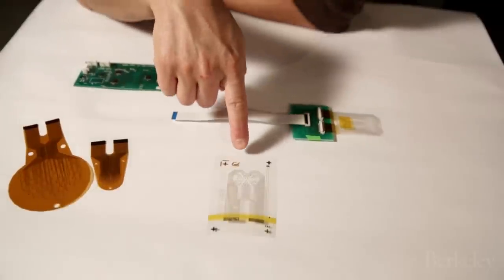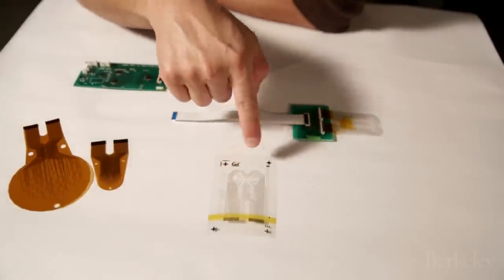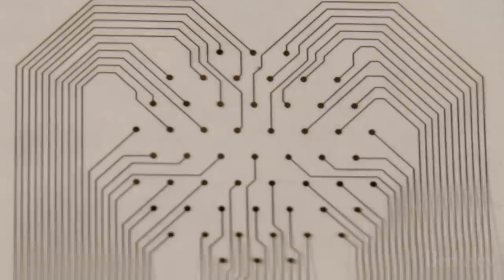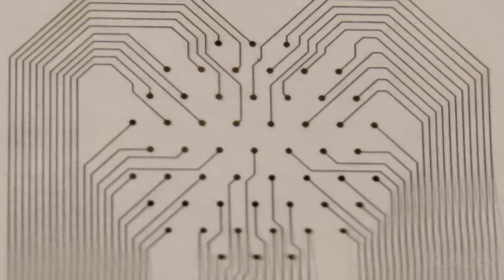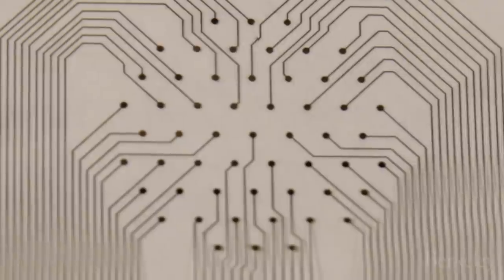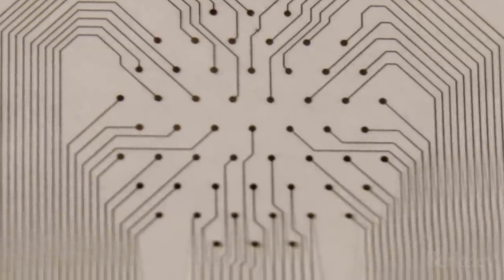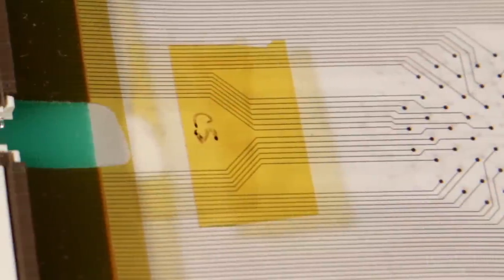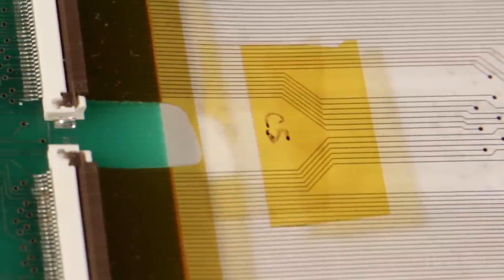This is the electrode array that would go on your skin and sort of be part of the bandage. So what you see here is a bunch of little electrodes, those are the little dots that you see right in the middle sort of clustered, and from each of those electrodes buried underneath are little wires that extend back out to a connector.